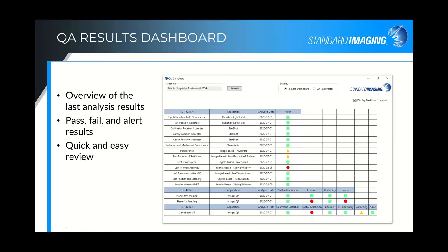We also have our QI results dashboard, which pops up showing the results of the last test performed. We use color coding — green for passing, yellow for caution, red for failure — and for color vision issues, we also use shapes: square, triangle, and circle. It gives you a quick, easy review of your pass, fail, and alerts for your last performed tests.